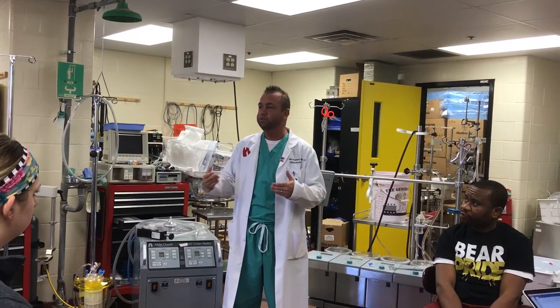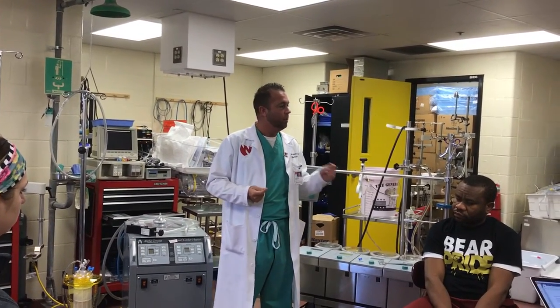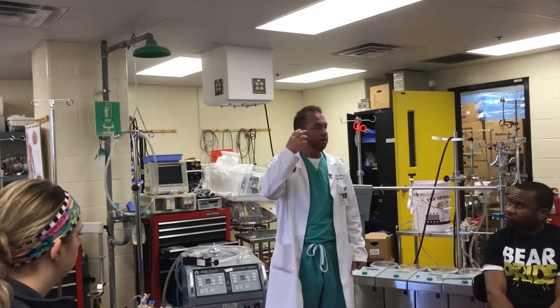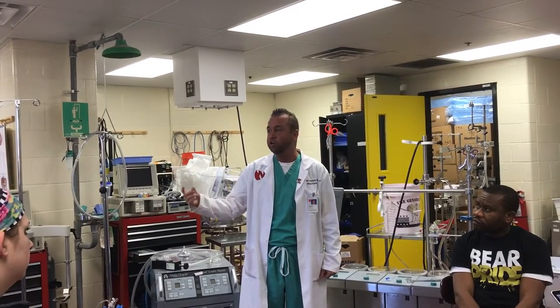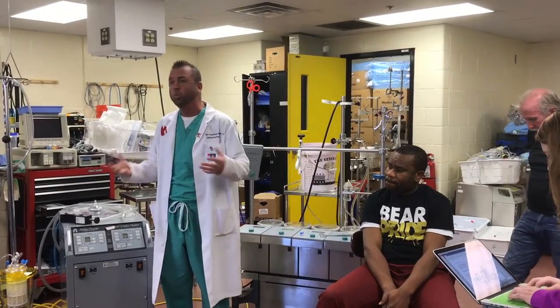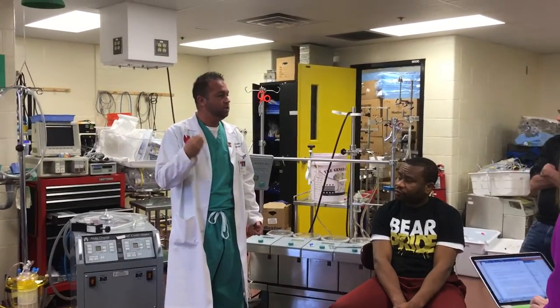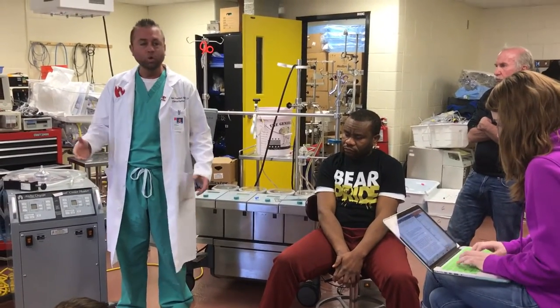Effective flow is what keeps the brain and body alive. During this lab, I'll be asking you to turn on cardioplegia, turn off the vent, turn on the hemoconcentrator, and so on — but I'll also be observing whether you have a good cognitive understanding of effective flow. If I ask you to run those shunts, are you compensating by increasing your pump flow to maintain adequate effective flow to the patient? That's imperative.